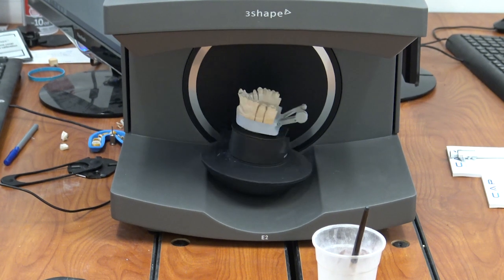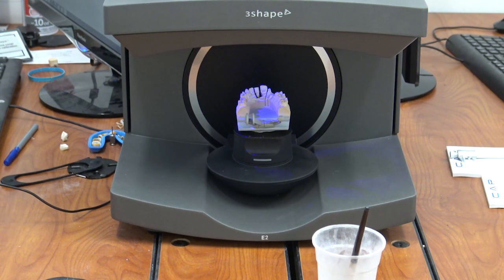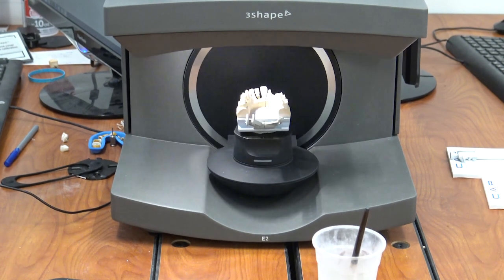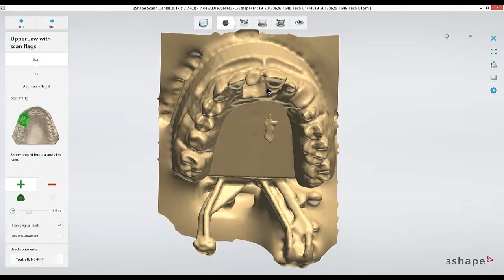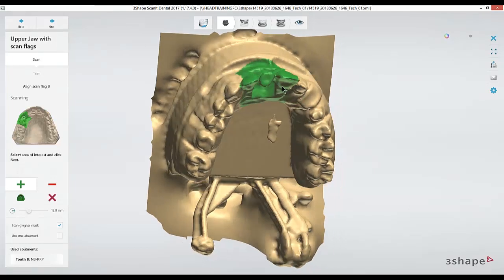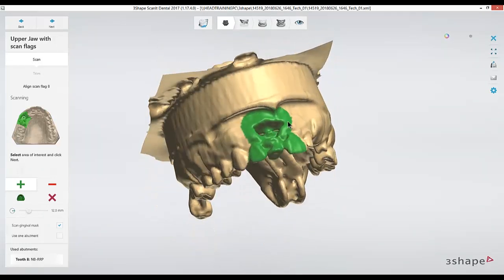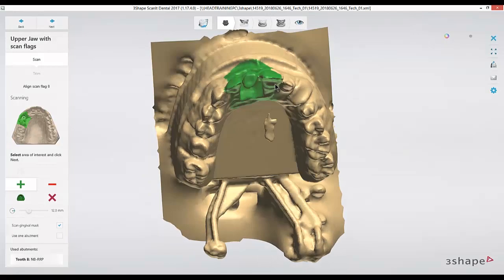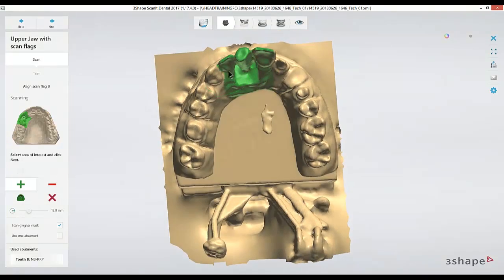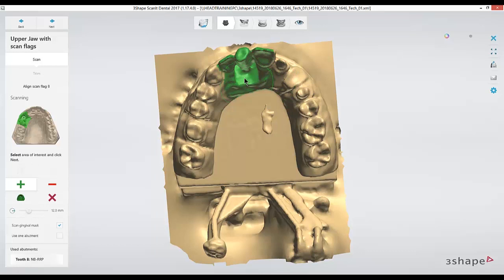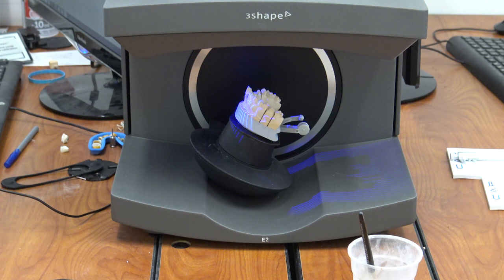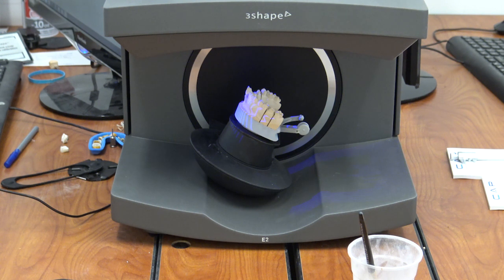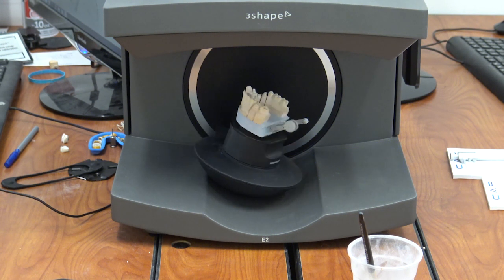Once the preview scan is completed, it'll ask us to select the area where we're working. So I'm going to left click and highlight just the immediate area around the scan flag. This is one of the higher resolution scans that the software attempts to take, so I'll usually just highlight this small area so that it doesn't take a lot of extra time. This is more noticeable with older systems than it is with newer models. As long as I've captured the adjacent teeth and the scan flag itself, I should be okay to continue next.